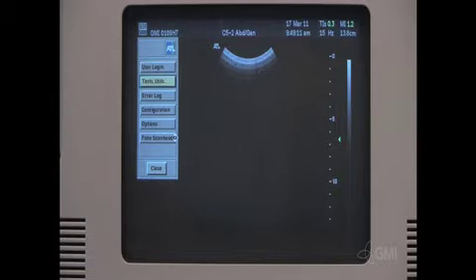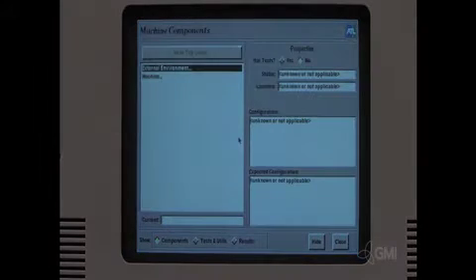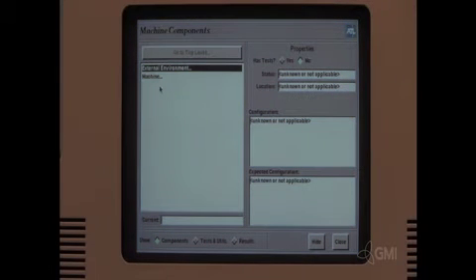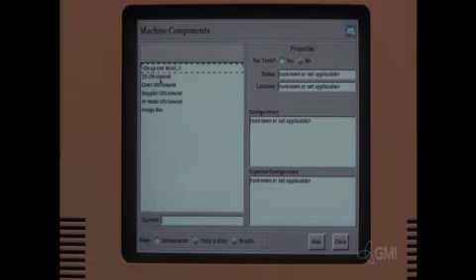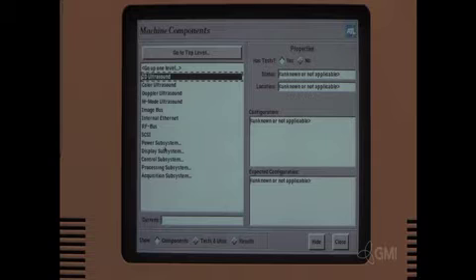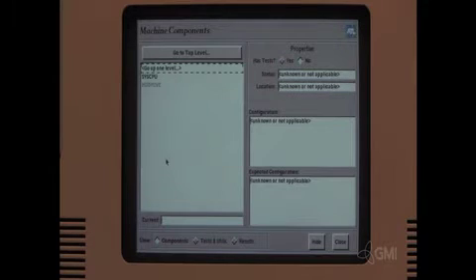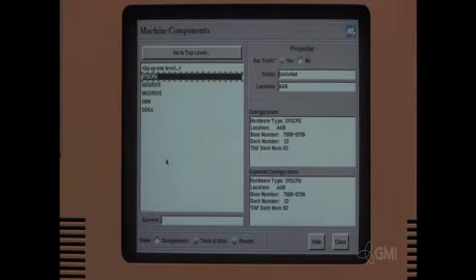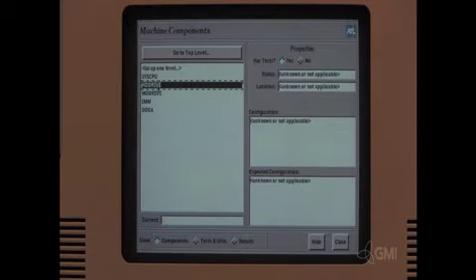Select test and utilities. Double click on machine. Double click control subsystem.